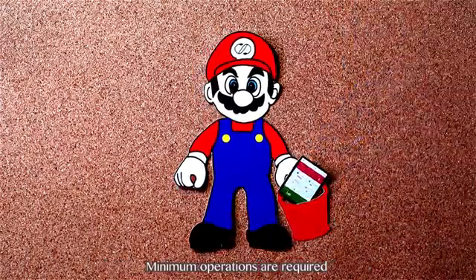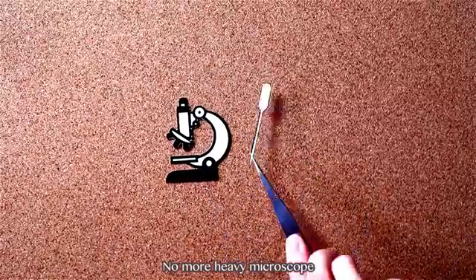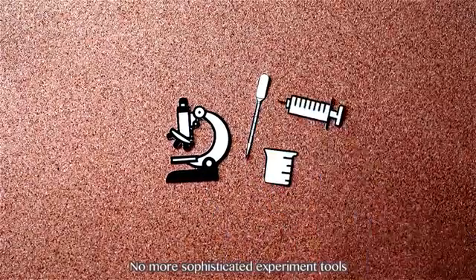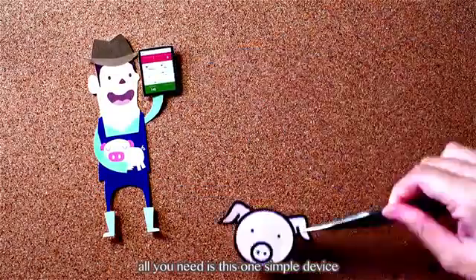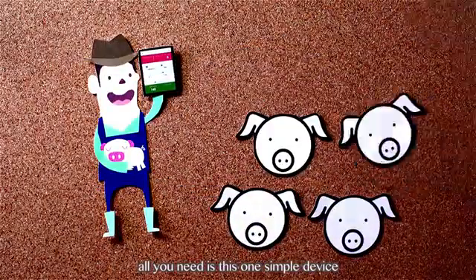Minimum operations are required. No more heavy microscope. No more sophisticated experiment tools. To enhance breeding efficiency, all you need is this one simple device.